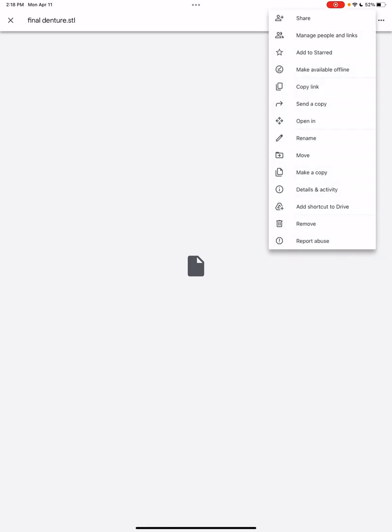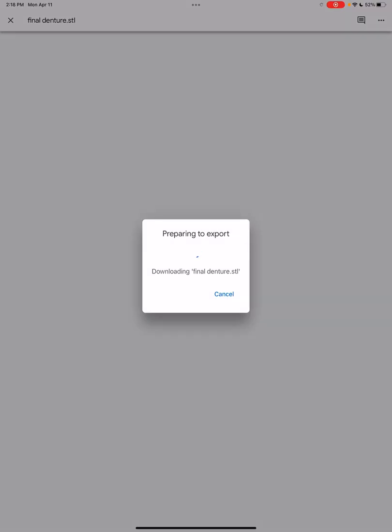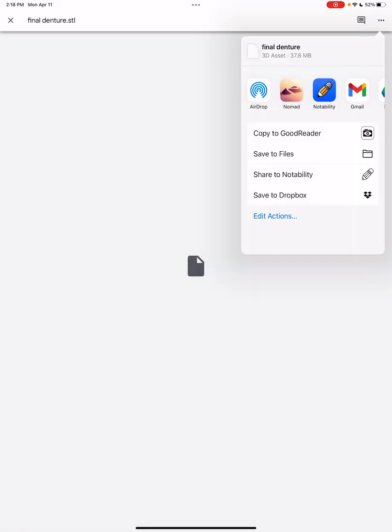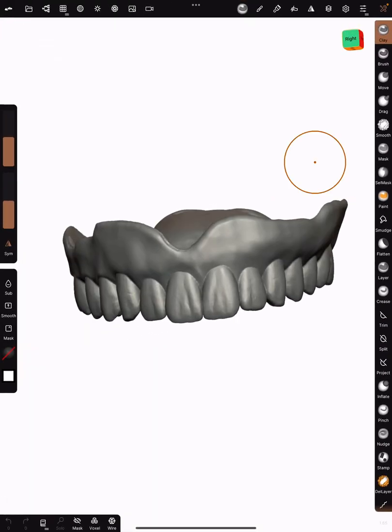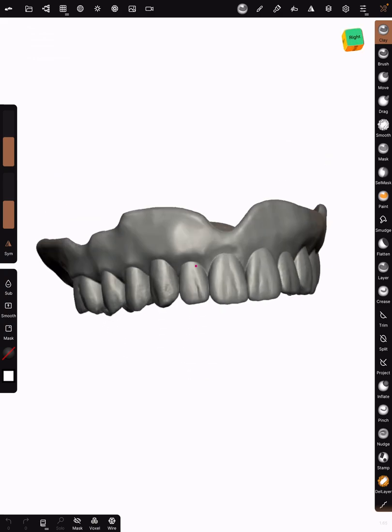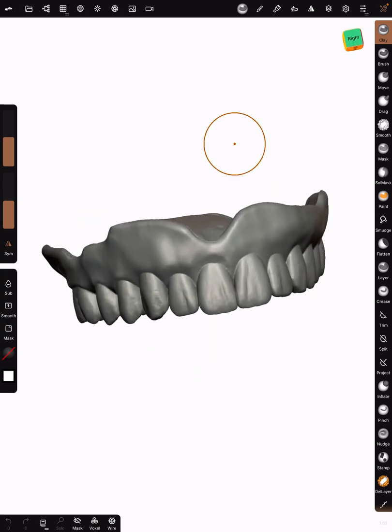I have no affiliation with those guys, just got bored one day and started sculpting in it. Open the STL file. I put it in Google Drive. You can email it to yourself, but then in Apple you just hit open in and it should show up as one of your options, Nomad, and it brings it right into the scene.